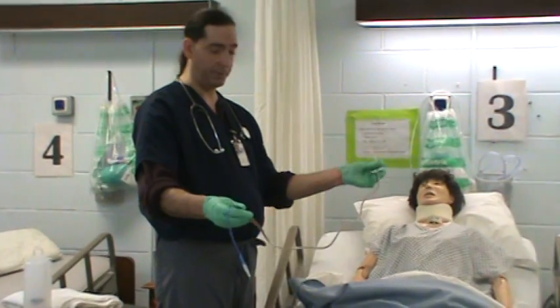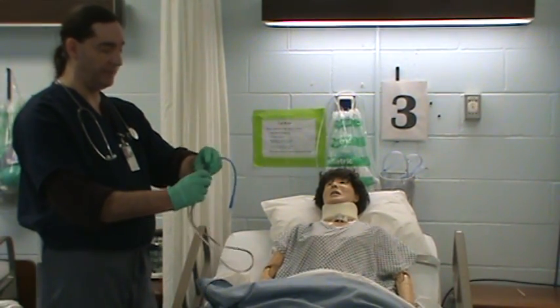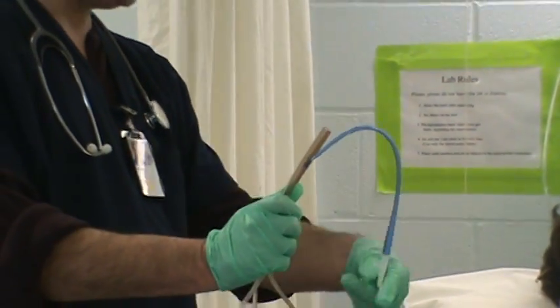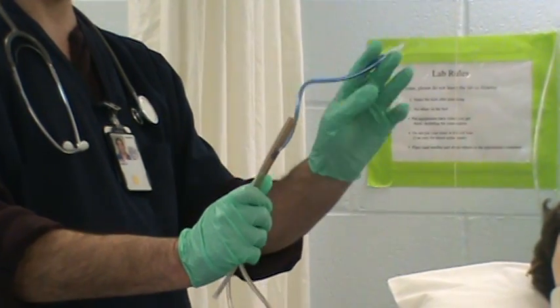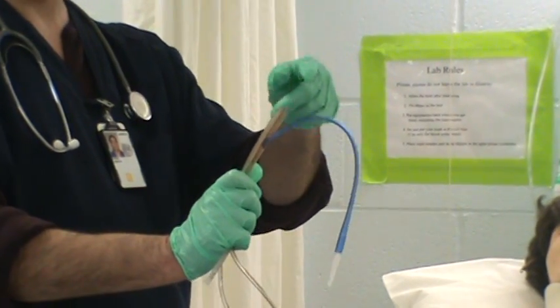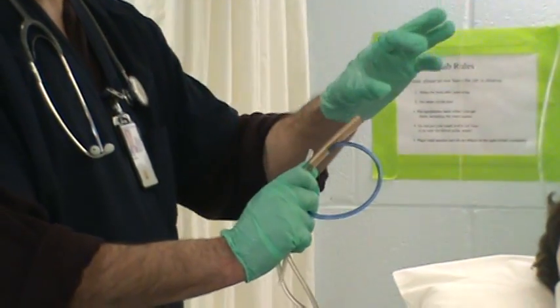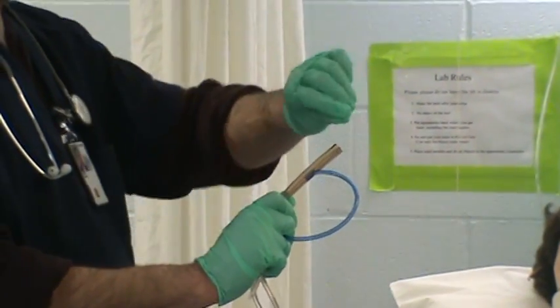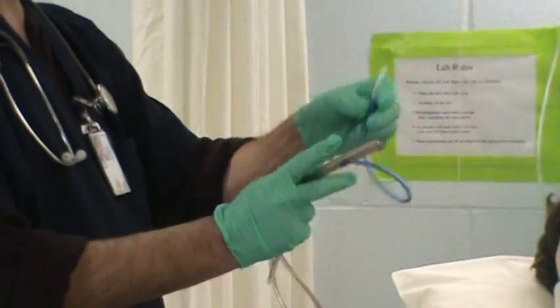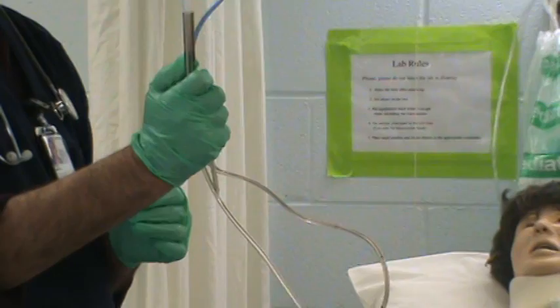This is the Salem sump. The blue port is for air — it's a vent. When this is in your stomach, it will vent air out. The larger port is the actual tube where you would be infusing your meds. At the hospital there's a section that hooks on here with a triple stopcock that you can flush stuff down, but you'll see that in the clinical area. In your packet you have one of these little connectors — connect it like that and it's closed.